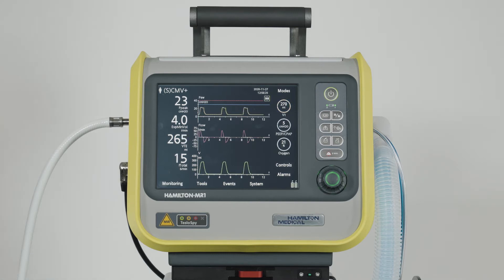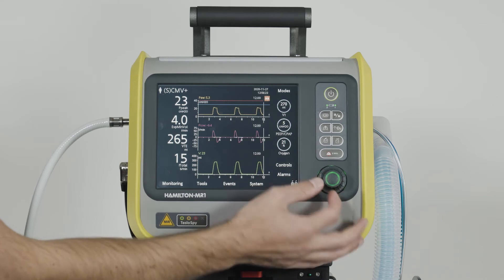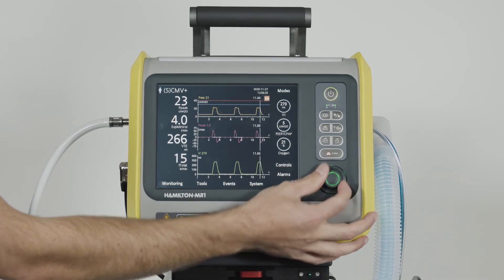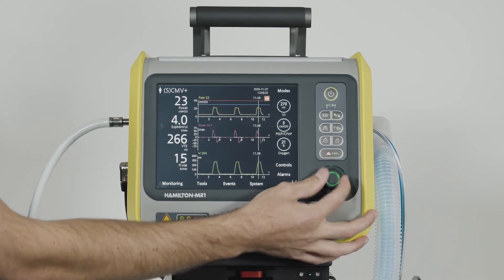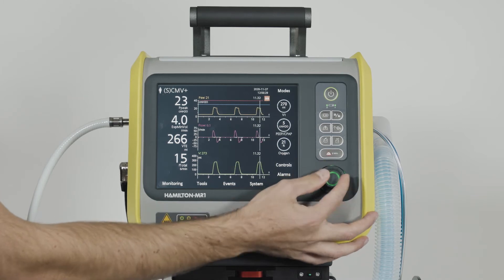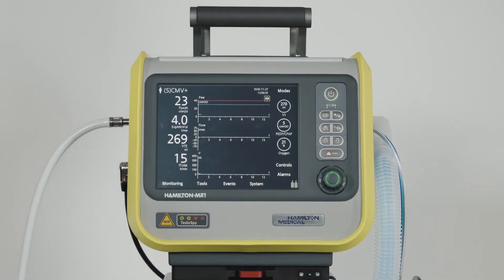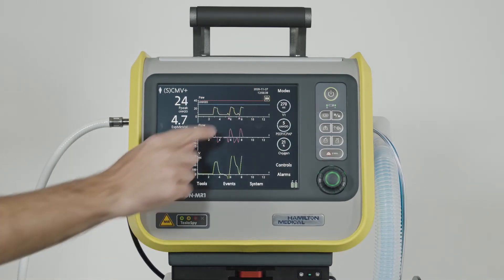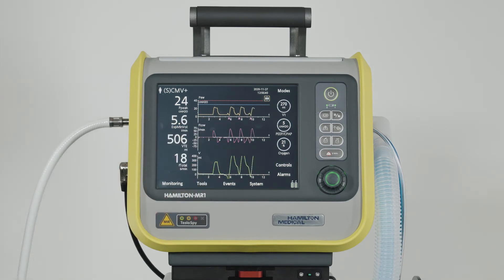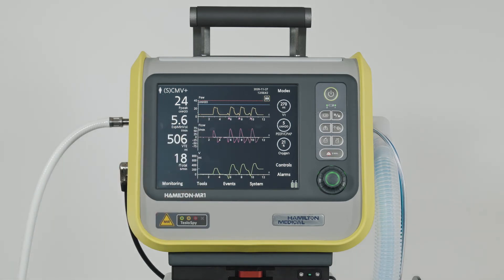If needed, you can freeze the graphic and scroll through the points to look at them more closely. The pink triangles below the pressure-time waveform tell you that the breath is patient-triggered.